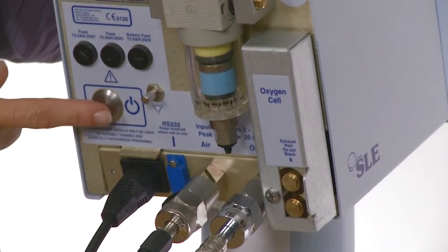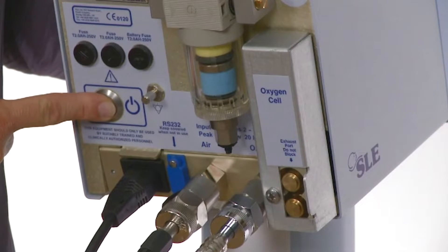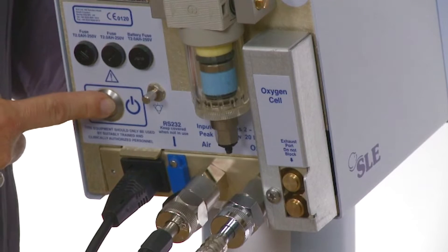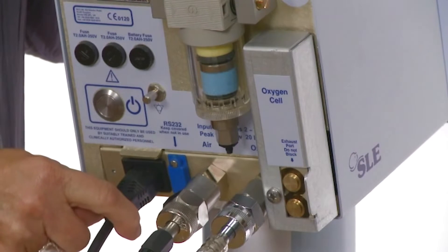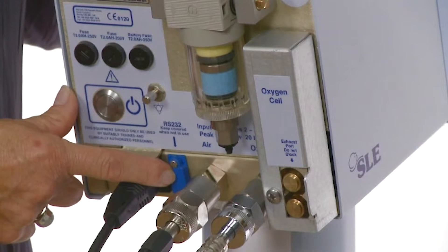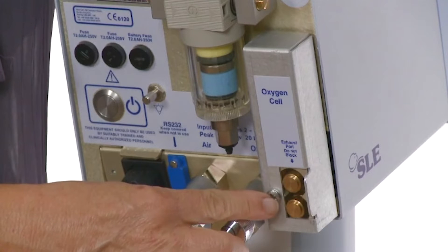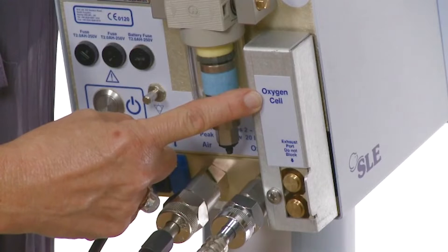Turning to the back of the SLE1000, you will find the mains power on switch, which has to be depressed for 3 seconds to power on. To power down the unit, press the power button for 3 seconds, then press again once more to cancel the power fail alarm. Just below it is the mains power inlet. Immediately next to it is the RS232 port, and next to that are the air and oxygen supply inlets. Next to that is the exhaust port, and above that is the oxygen cell cover.